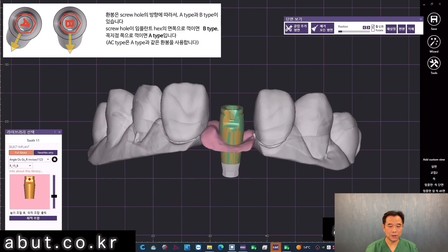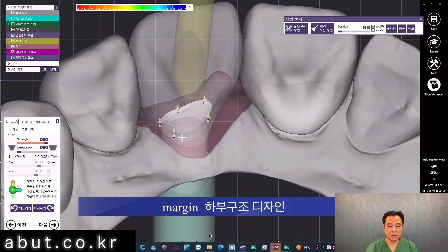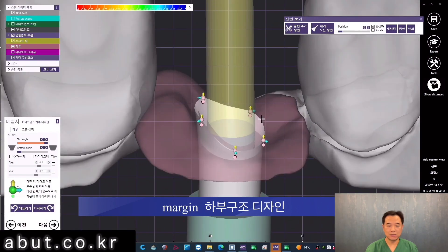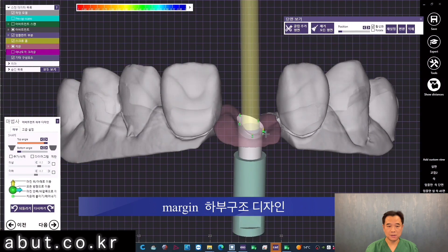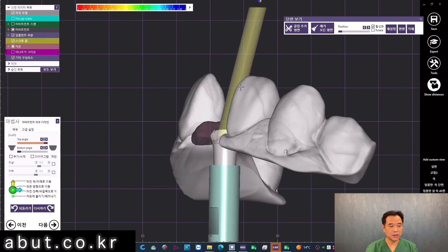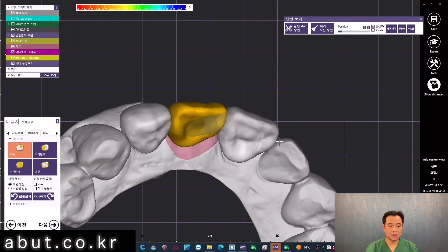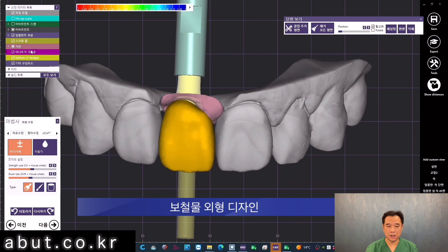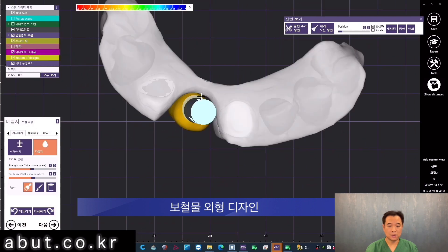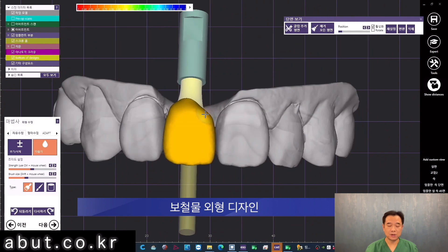Next, we will design the inferior structure of the margin. After designing the exterior prosthesis, the next step is designing the abutments. The most important point is to match the fixture axis of the implant and the insertion axis to be parallel, so that there will be more space left for the prosthesis on the buccal margin to create a thick aesthetic buccal ceramic collar margin.